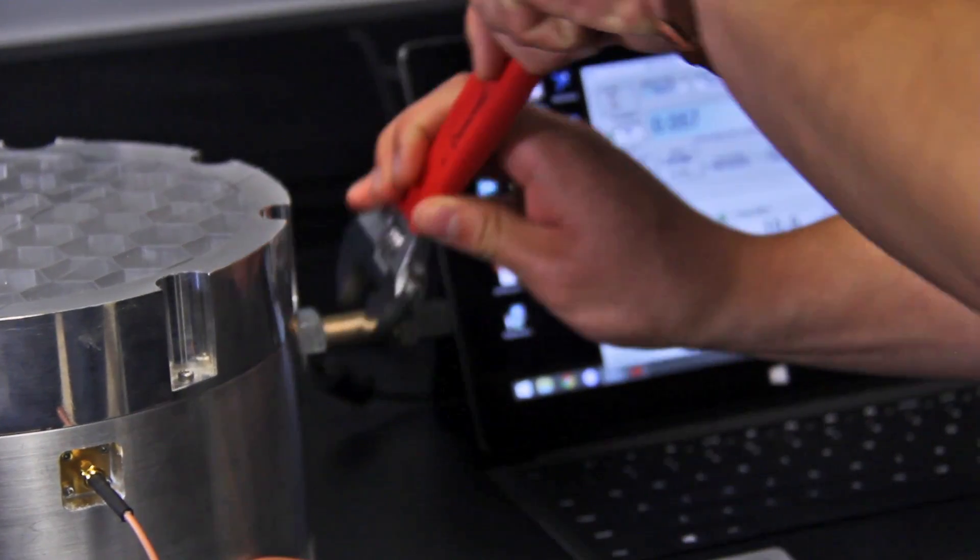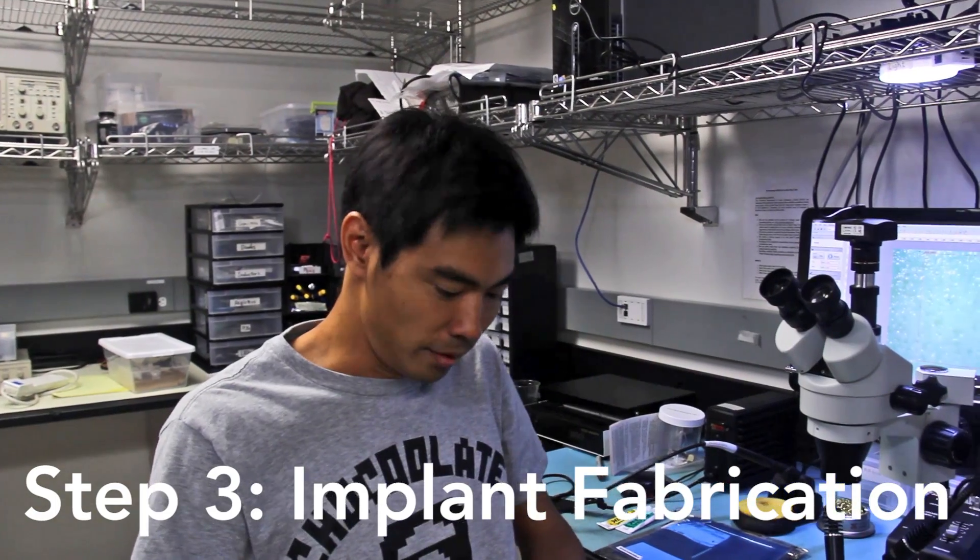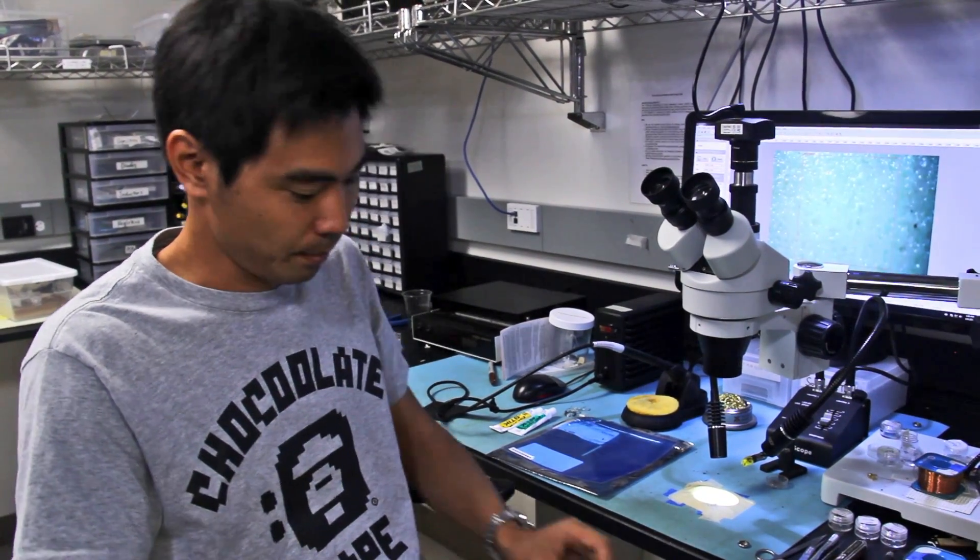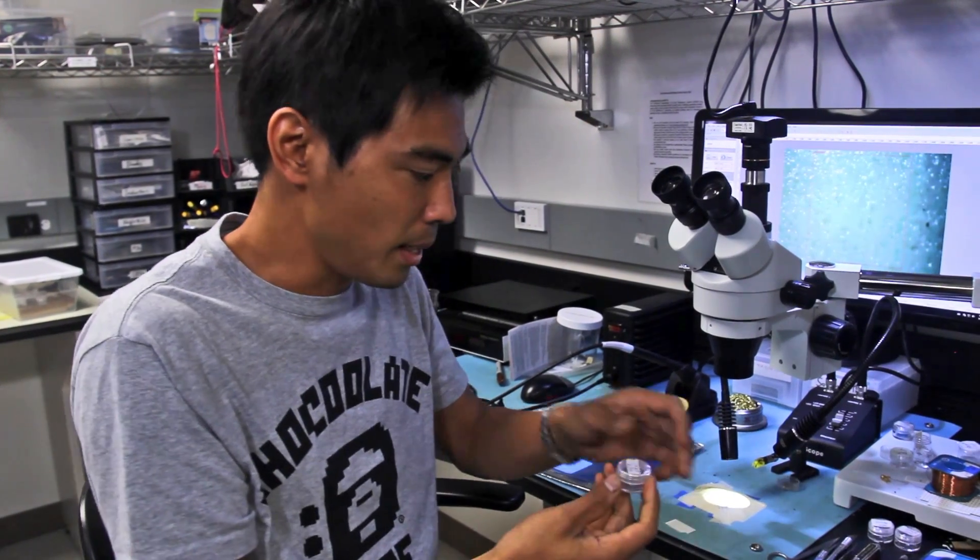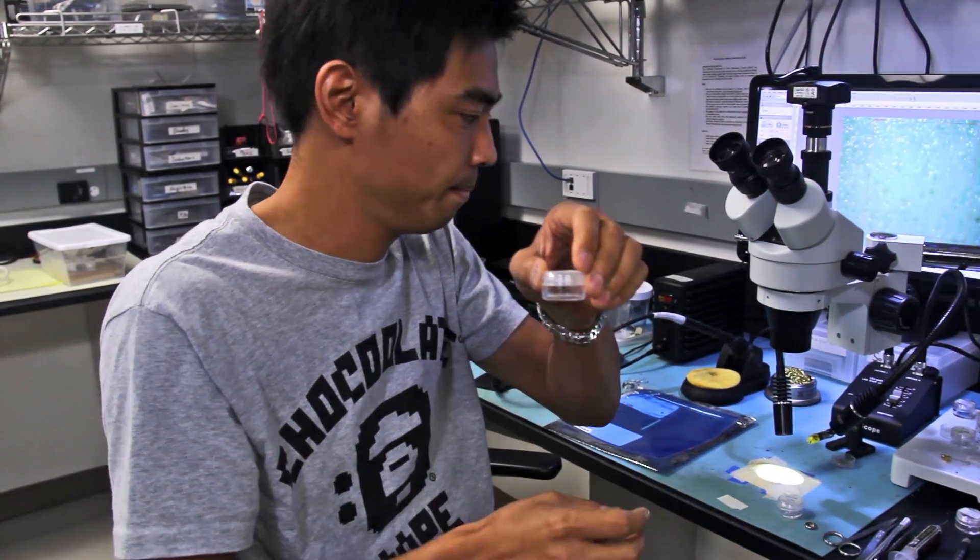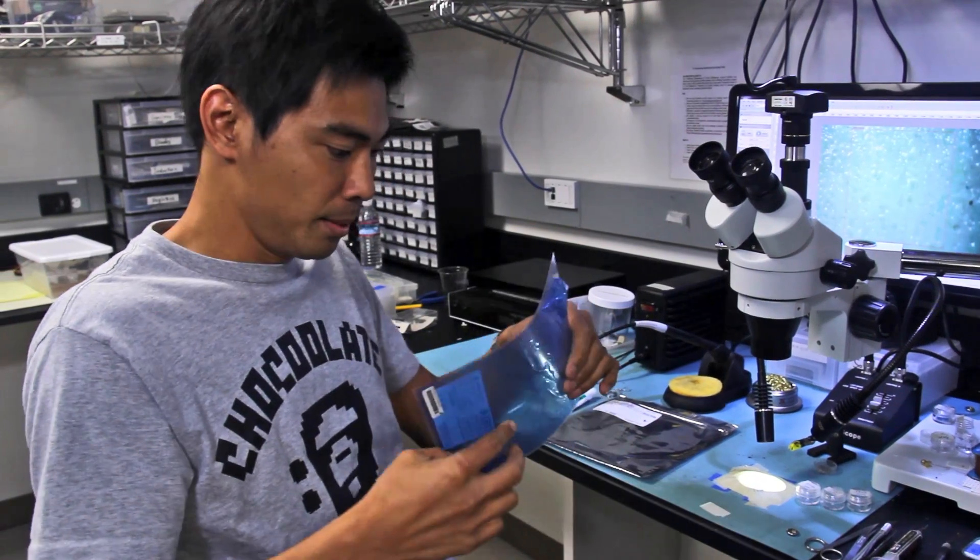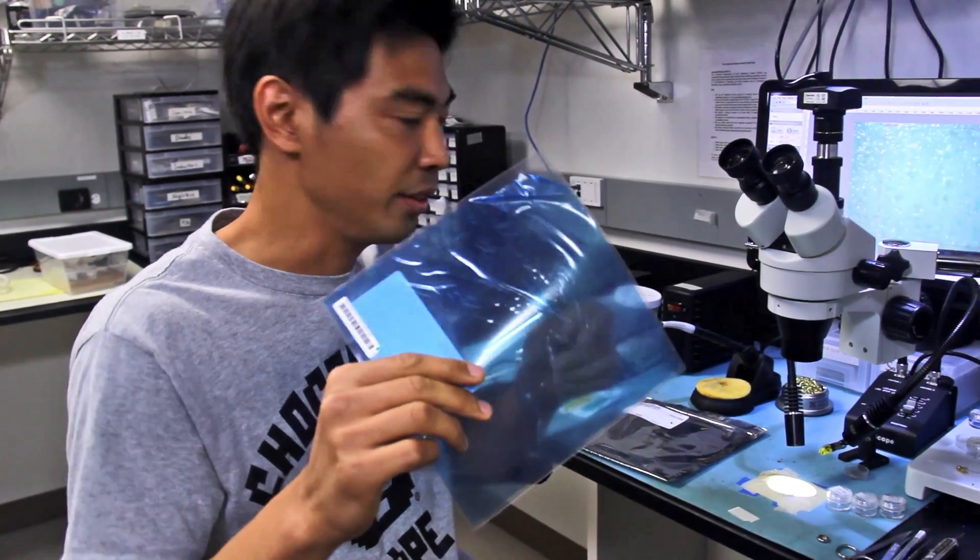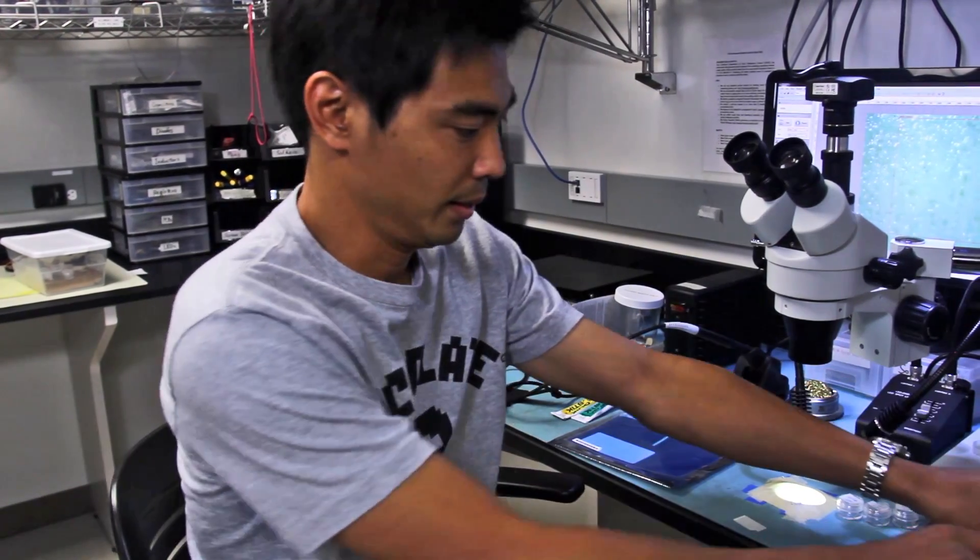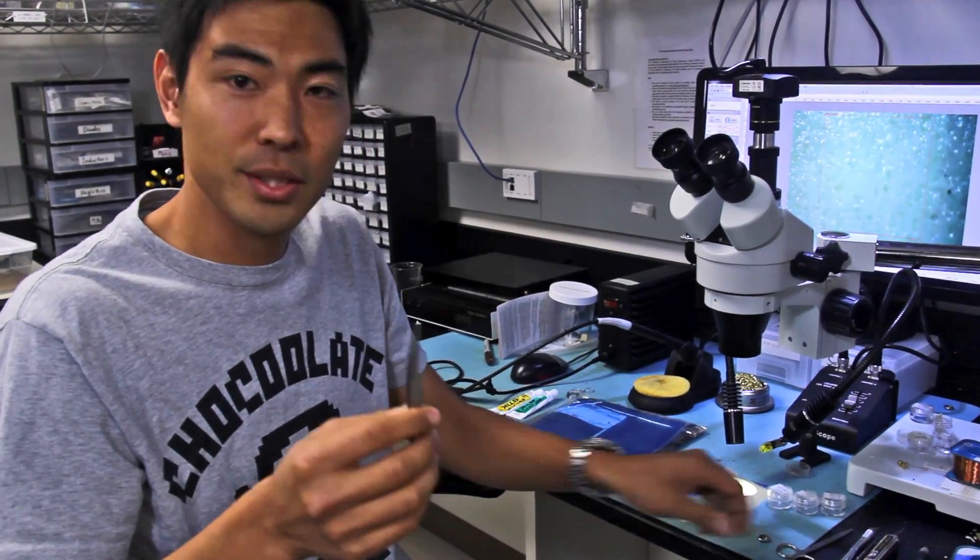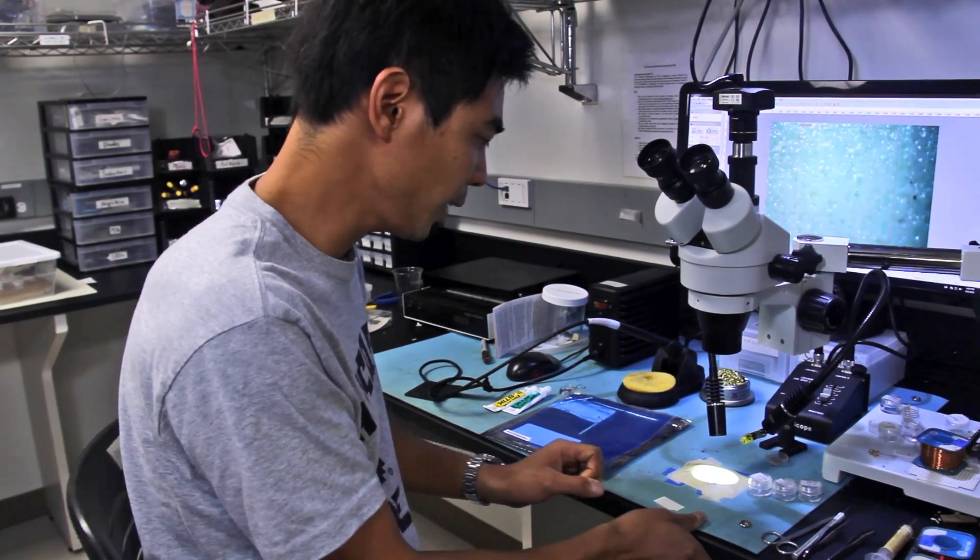Now that we've completed the cavity, the power amplifier, and the signal generator, the next step is the implant. Okay, now let's make implants. So what we need is a tiny PCB board that you lay out for the implants. So what we need is diodes, and capacitors, and another type of capacitor. And we also have small tiny LEDs, so tiny you cannot see, but I will show you later in the microscope. So this is almost done, and this is a tiny wire. So it's better to use those kind of tiny tips and soldering paste to make implants.